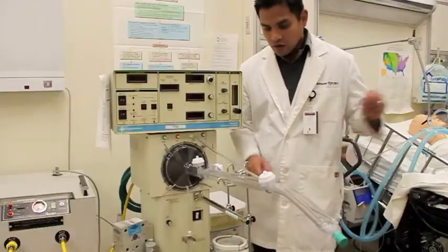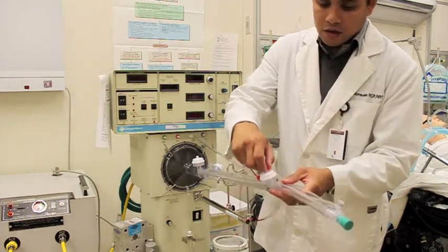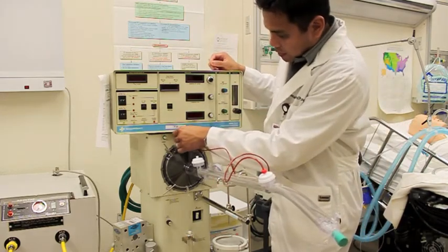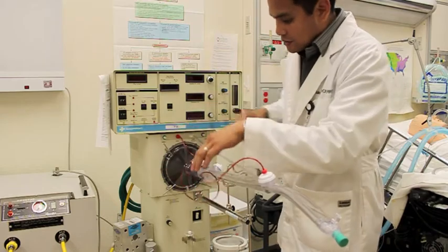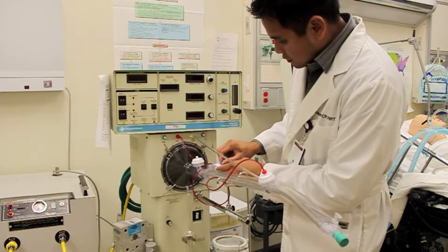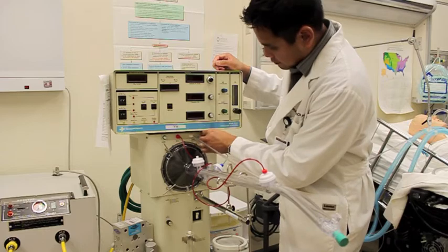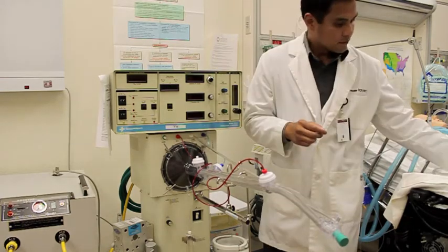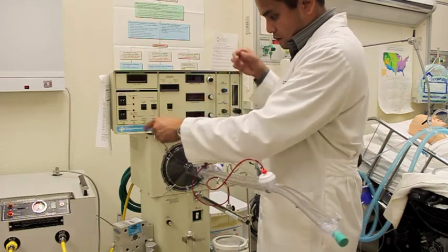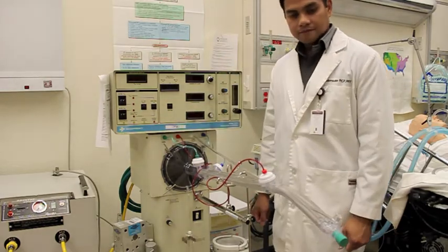Next thing is just to connect all the lines. Again, they're color-coded, so it's very hard to make a mistake here. And they also have certain lengths where there's only one way for them to be connected, so again, very hard to make a mistake here. Okay, so we're just going to connect these. So the blue's on this side and the green is on the right side. Okay, so there you have it.